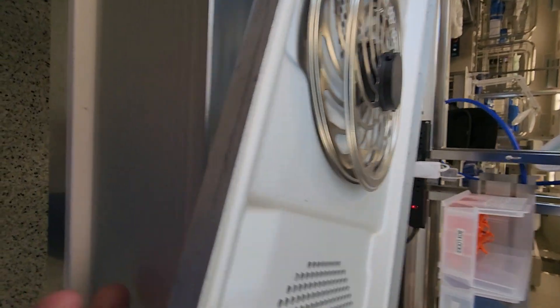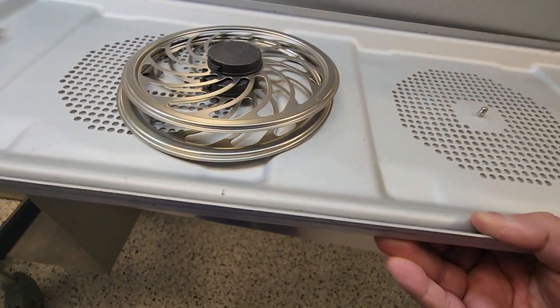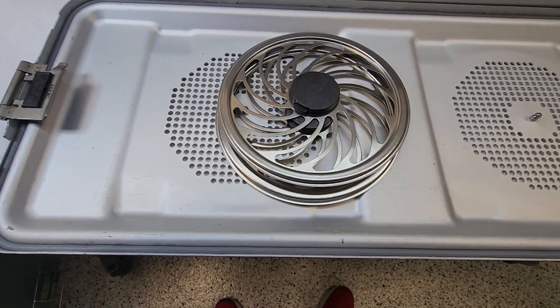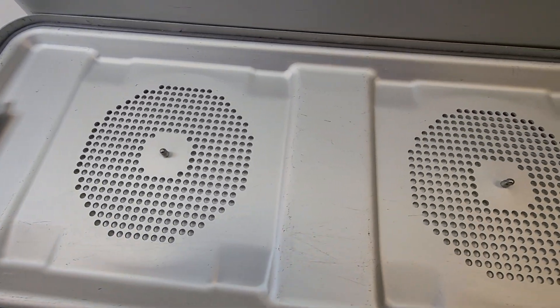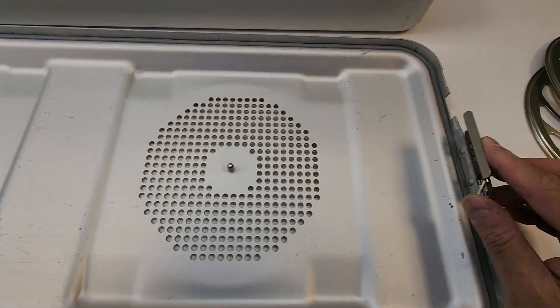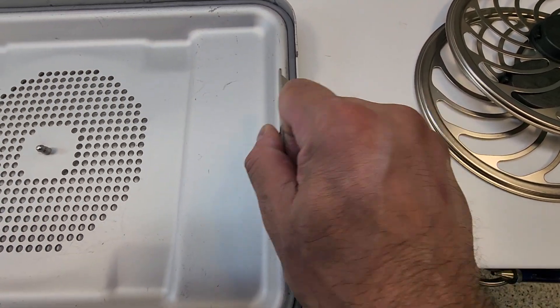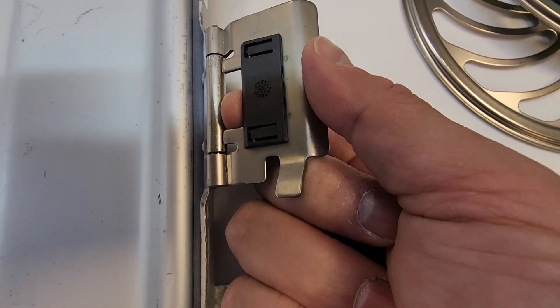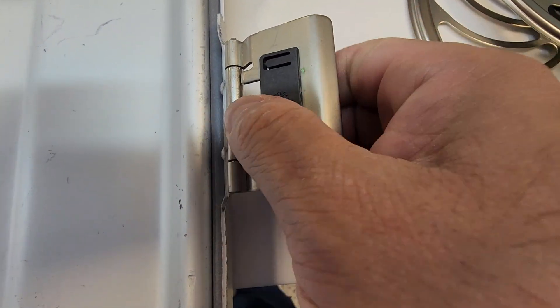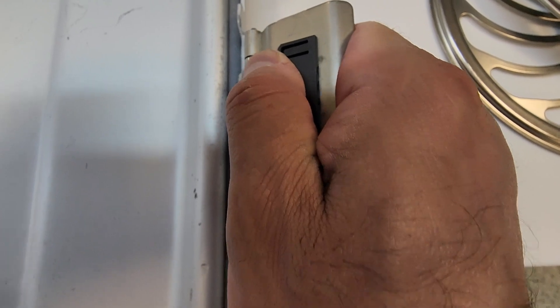Let's take a look at this lid. What does the lid come with? Well, you have two retention plates — we will get to that in a second. We have the actual container top, which is a perforated top. You want to inspect the latches — we have the latches intact. And believe it or not, this is a spring mechanism, and you want to make sure it is nice and firm. It shouldn't be very loose; it should be pretty hard to actually manipulate.